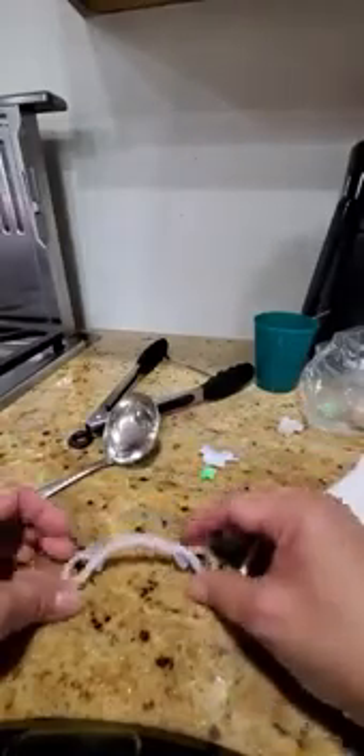I pretty much got the shape and design I want. Obviously, I don't have the mouth of the child to try it on, which I always try on daily. I put it down and it's pretty much flat. Stand it up and it's pretty close to equal. See all these little ridges and edges and bumps? I will now spend maybe about 10 minutes dipping it in for like one second each time and smoothing it out with my finger. Doing that helps keep it really soft against your skin. The most important part is this curve here where it goes into the side of the cheeks and lips — this has to be completely smooth, and the thinner and narrower, the better.